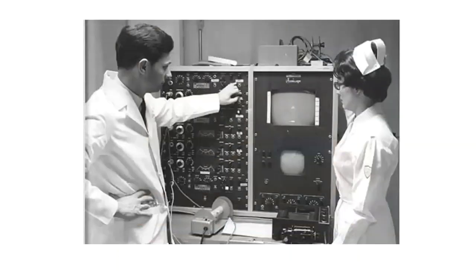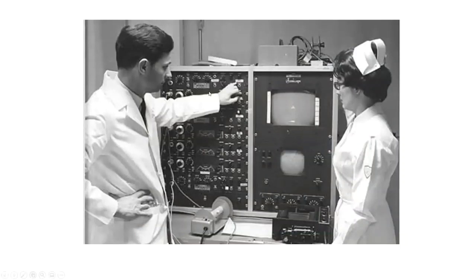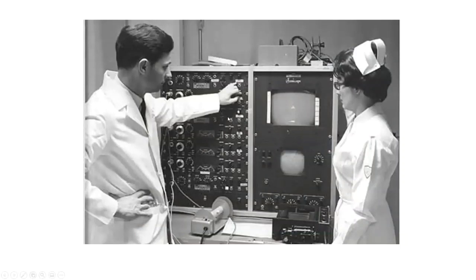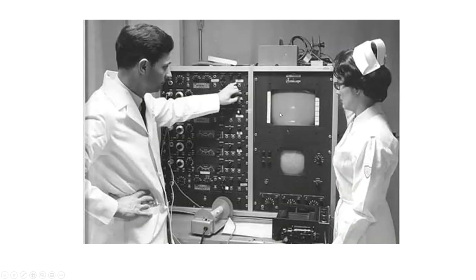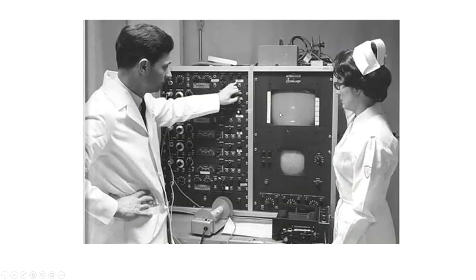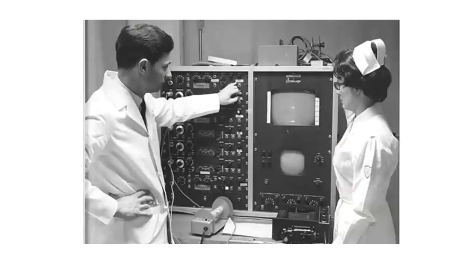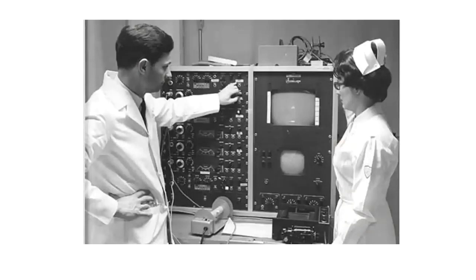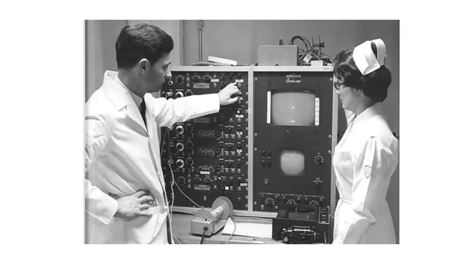This is a photo of Harvey Feigenbaum. And believe it or not, this is what M-mode echocardiogram machines looked like in the 1970s when I was a medical student and Dr. Feigenbaum was already an established figure in echocardiography.